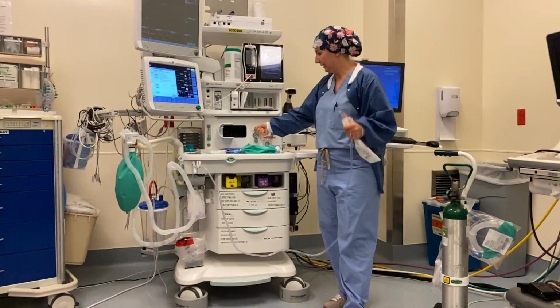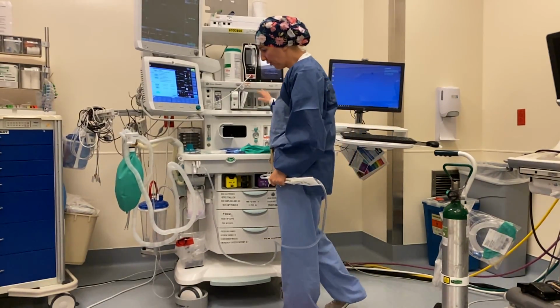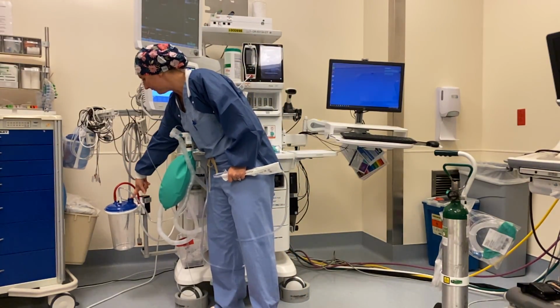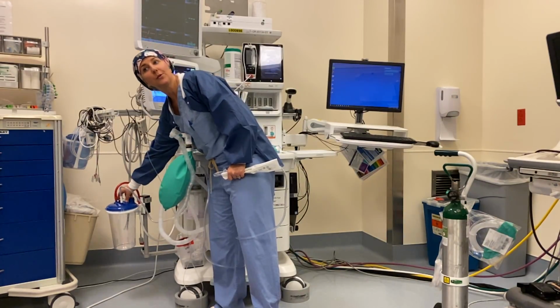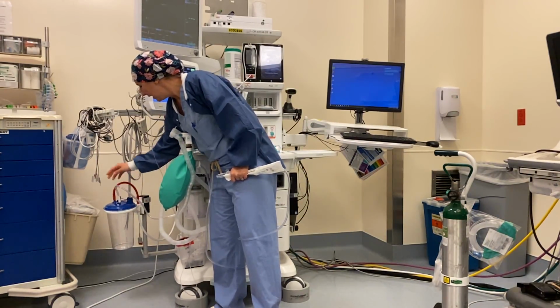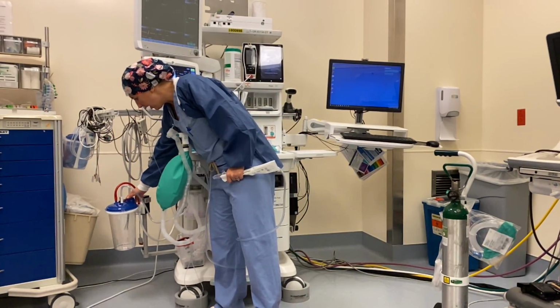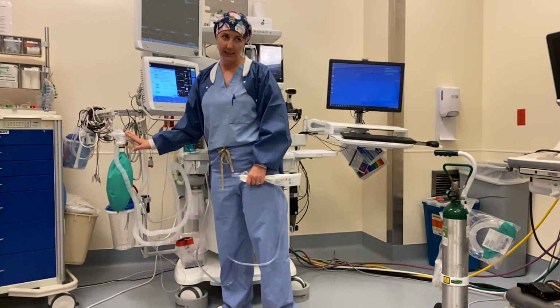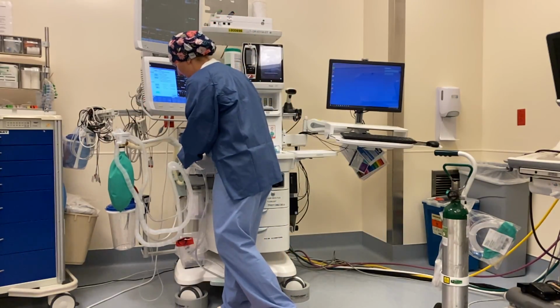And then if you turn it on and it still doesn't make that noise, sometimes you just need to turn it up. If you do those things and you still don't hear anything, of course you want to look over here. There's a lot of different spots where there are connections, and one of them could have come apart, or one of the little caps popped off, etc. If you connect everything and make sure that all of the access points are covered and it's still not working, then go ahead and call your anesthesia tech and let them know that in OR 7 you don't have any suction, and they can come and help you troubleshoot.